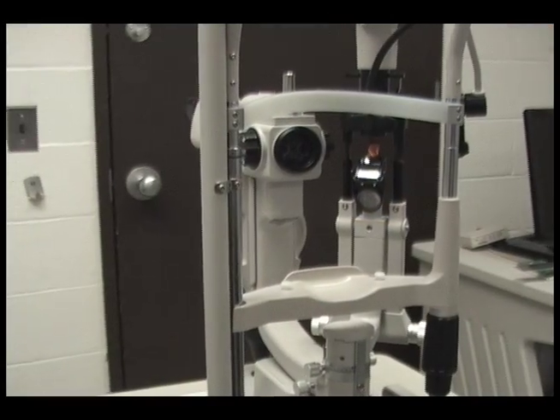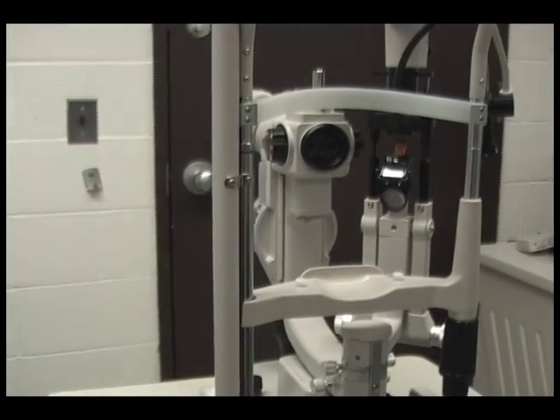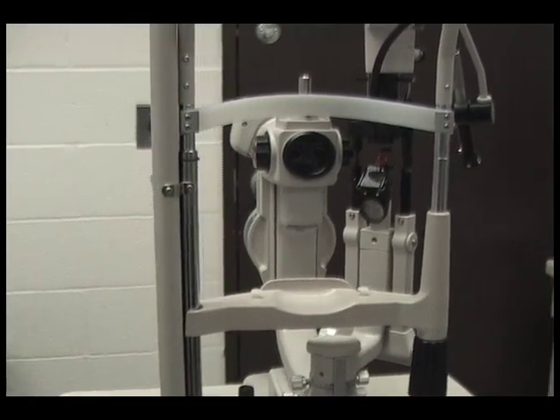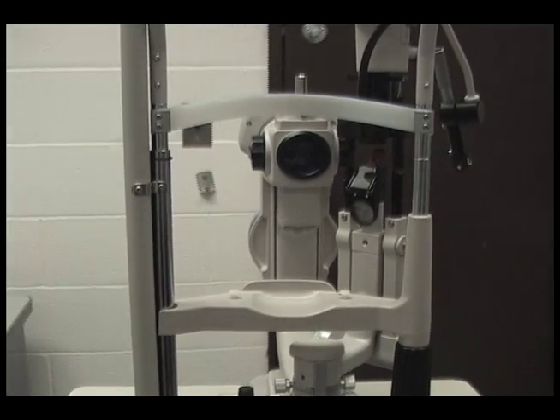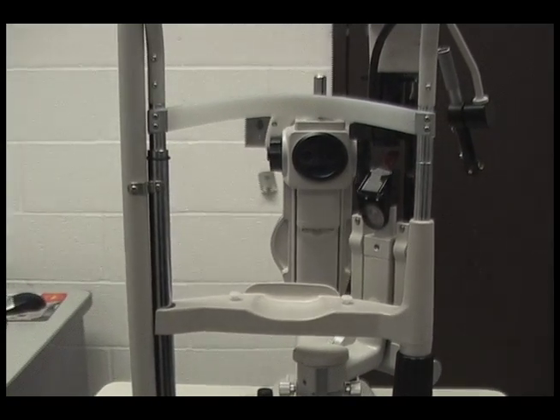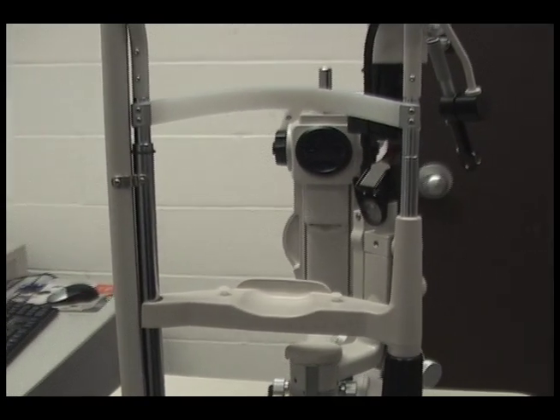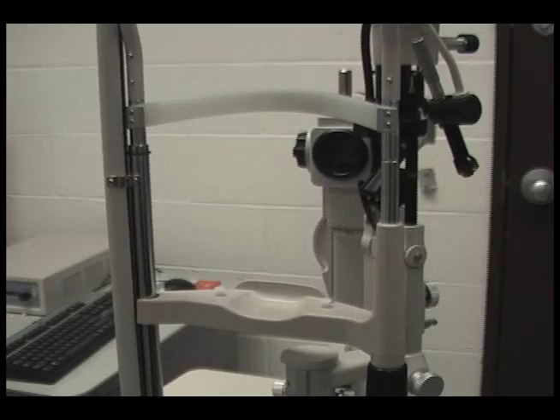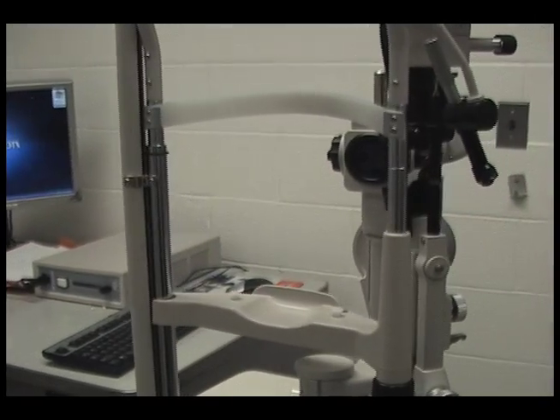Using the slit lamp is much more about using the photographic side of your brain. You need to interpret your subject to devise a lighting strategy as soon as you look through the viewfinder.